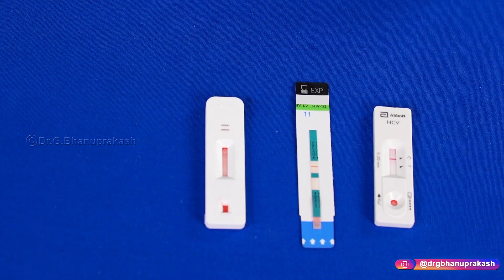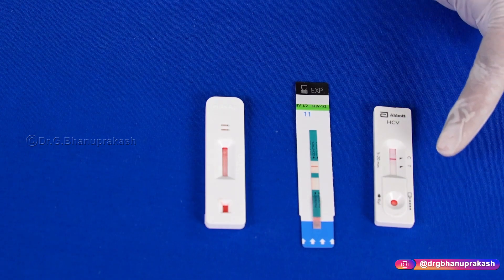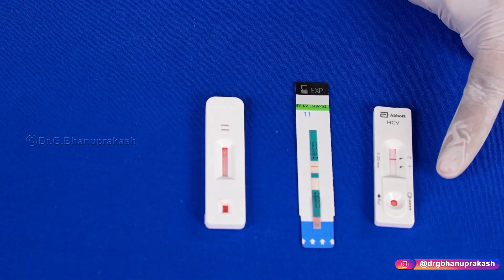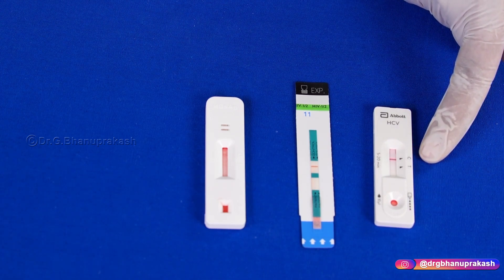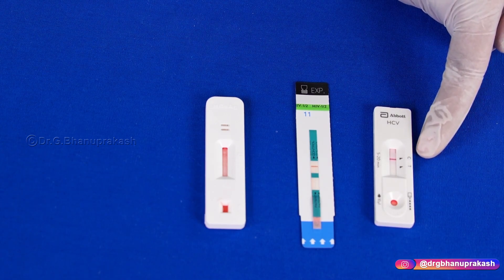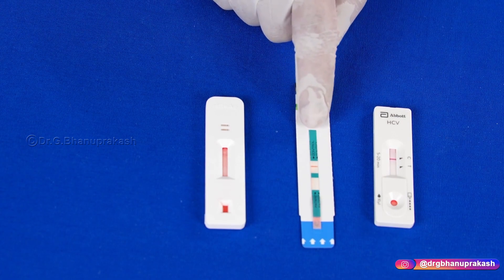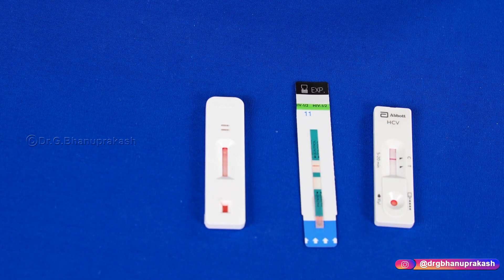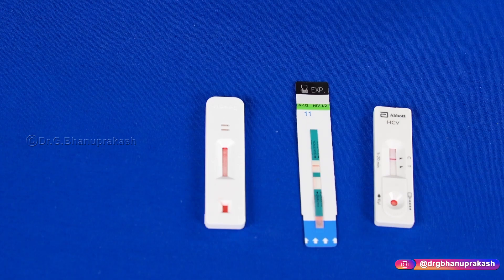An important point: sometimes you may see a single line only on the test side but no line on C. If you see a single line on the T side and there is no line on the C side, it means the test has an error and you need to repeat the test. But if you see a single line on C and no line on T, the test is negative. For this patient, the line is present on C (control) for HIV and HBsAg, confirming both are negative.